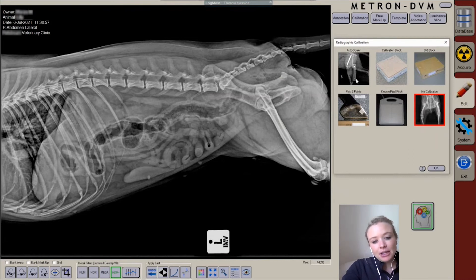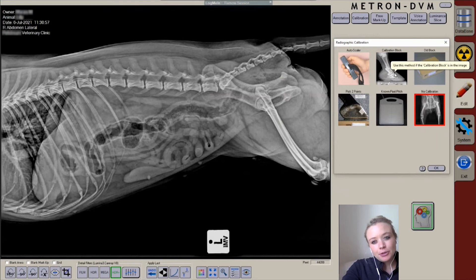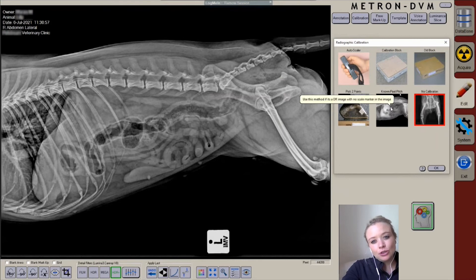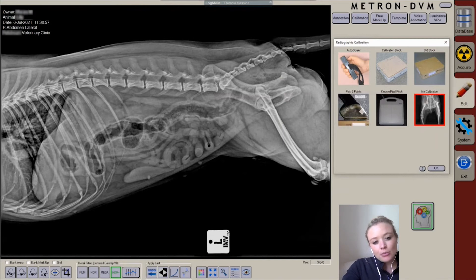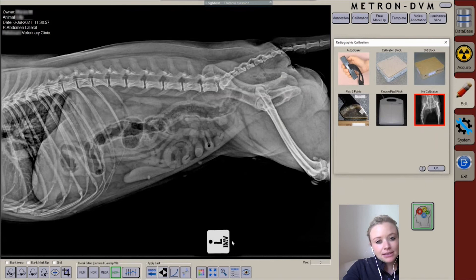If this has been forgotten, another option is to use two points on your image that you are confident of the exact size. For example, this IMV marker, or generally your left and right marker on your software, is something that is generally present in every X-ray, or should be present in every X-ray, and can be measured very accurately.